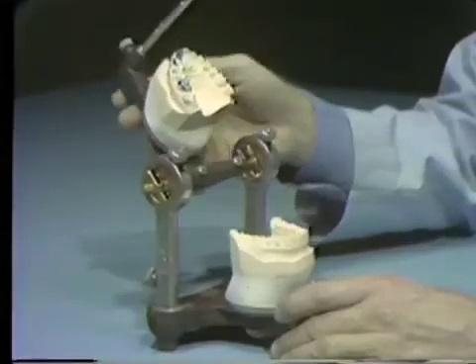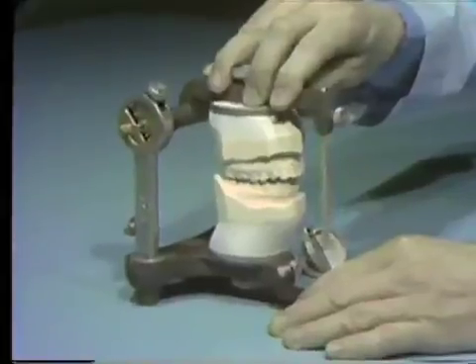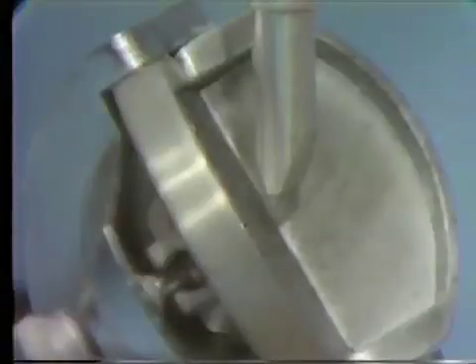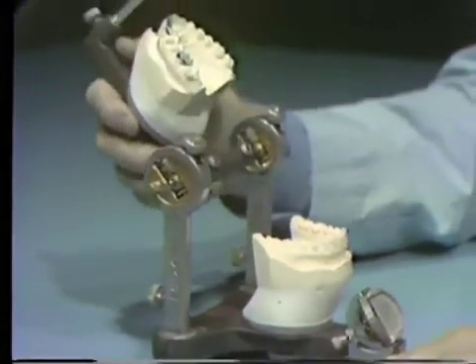Close the articulator with the condylar elements locked in the retrusive position. Premature tooth contacts prevent the cast from closing into centric occlusion, as demonstrated by the incisal pin not contacting the incisal table. Check the tooth contacts on the first molar after closing the articulator in the simulated centric relation position. The only dull areas on the zinc stearate are those made by the original centric occlusion stops. If additional marks had been present, they would be considered prematurities in centric relation, and the wax would then be carved away to eliminate them.